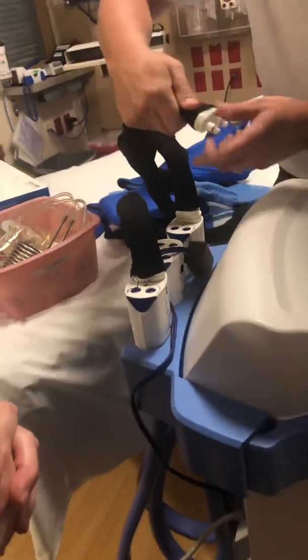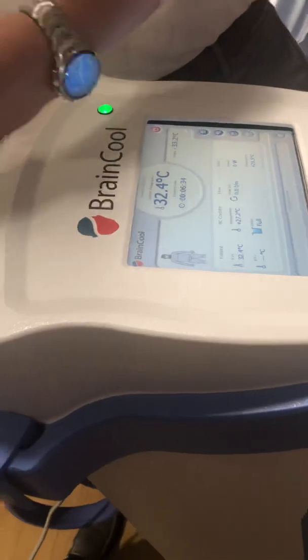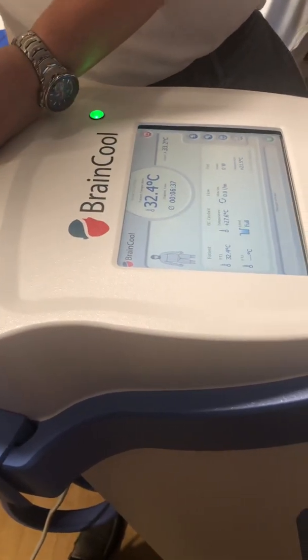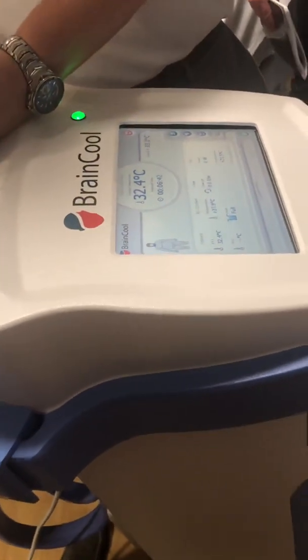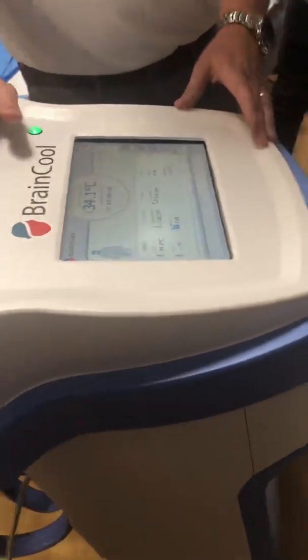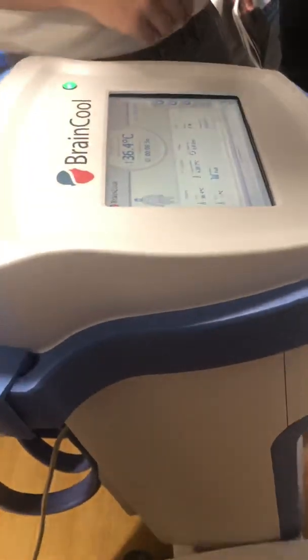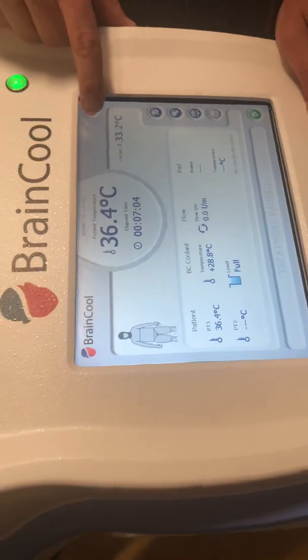Let's go with these just for the heck of it. So now I've connected the thigh pads, and it's not going to show anything there. Let me dial my patient target, 33.2, let me make my patient hot. Okay, all right, so you're like, oh man, I just connected the pads. Why isn't it showing up? Because you can see it's blue when it's cooling, it's red when it's warming. Okay, so we're going to go ahead and hit pause.